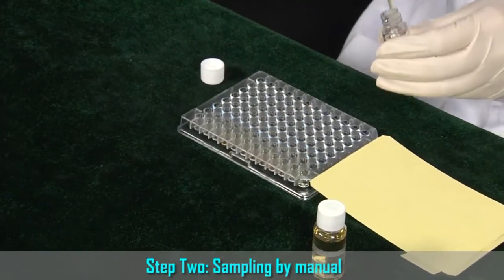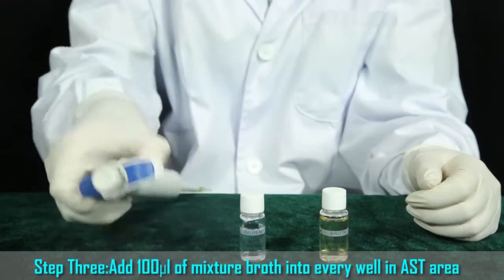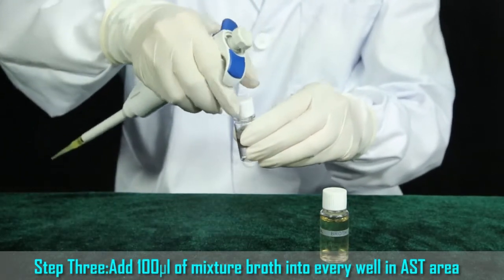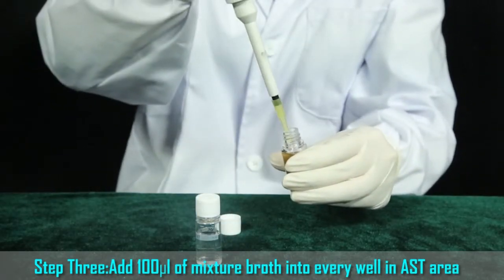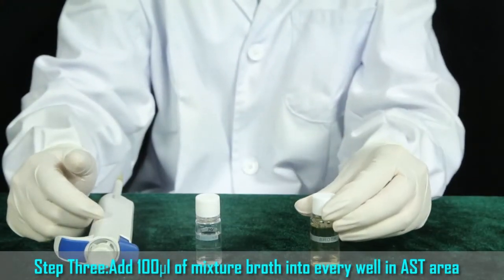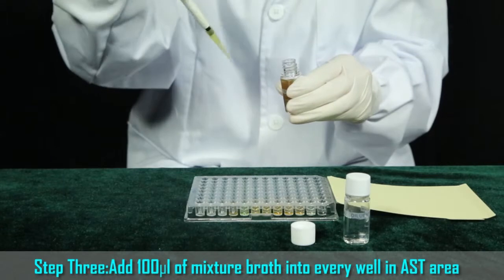Step 2. Sampling by manual. Add bacterial suspension into the identification area A1 to C4, 100 microliters per well. Step 3. Add 50 microliters of bacterial suspension into broth and mix well. Inject the mixture into the AST area, which is the Antimicrobial Susceptibility Testing area C5 to H12, 100 microliters per well.